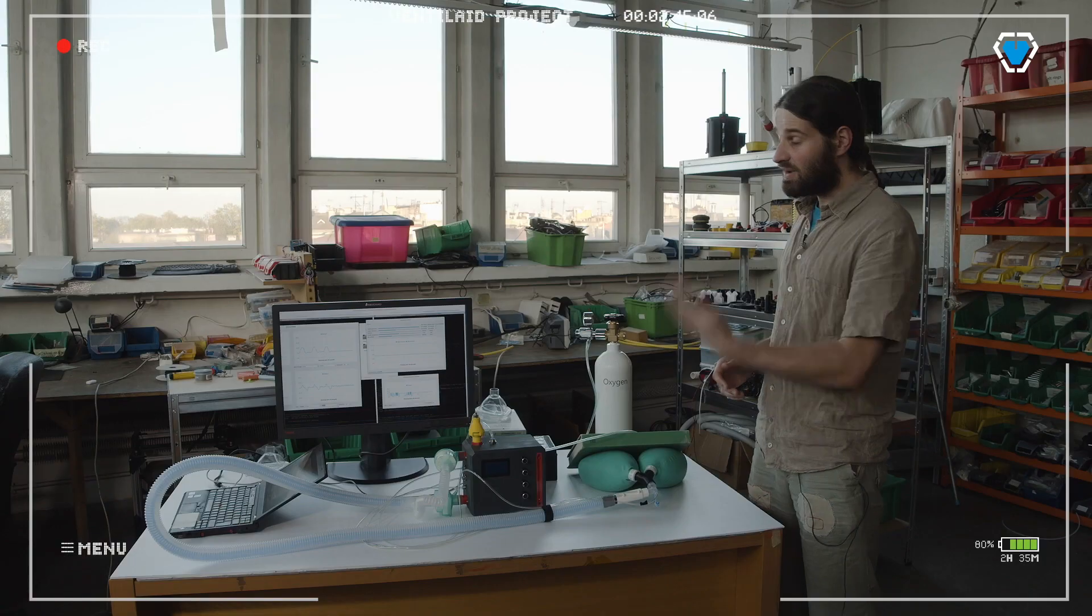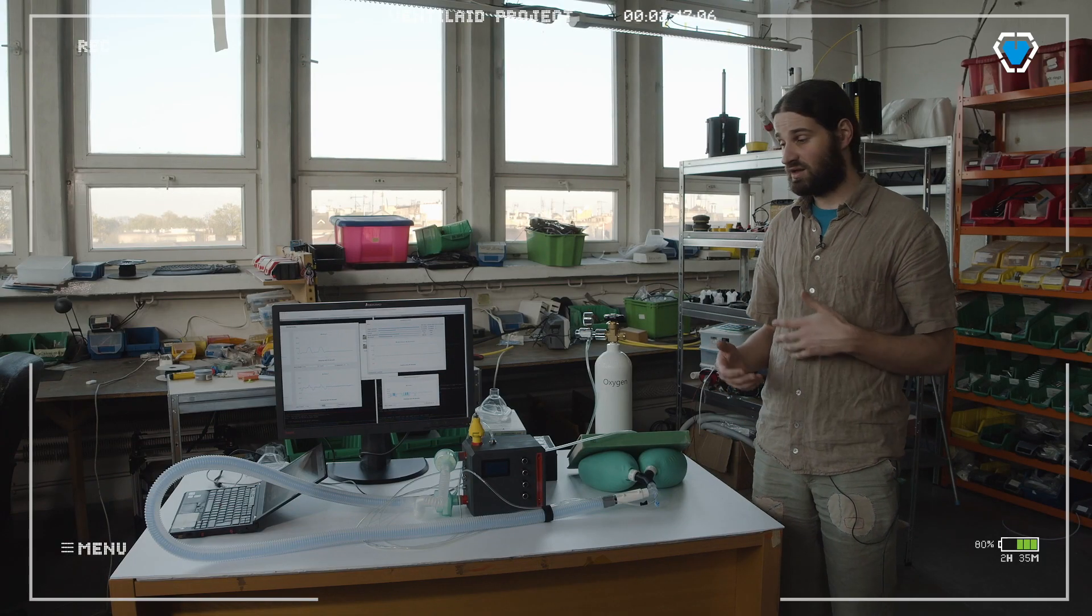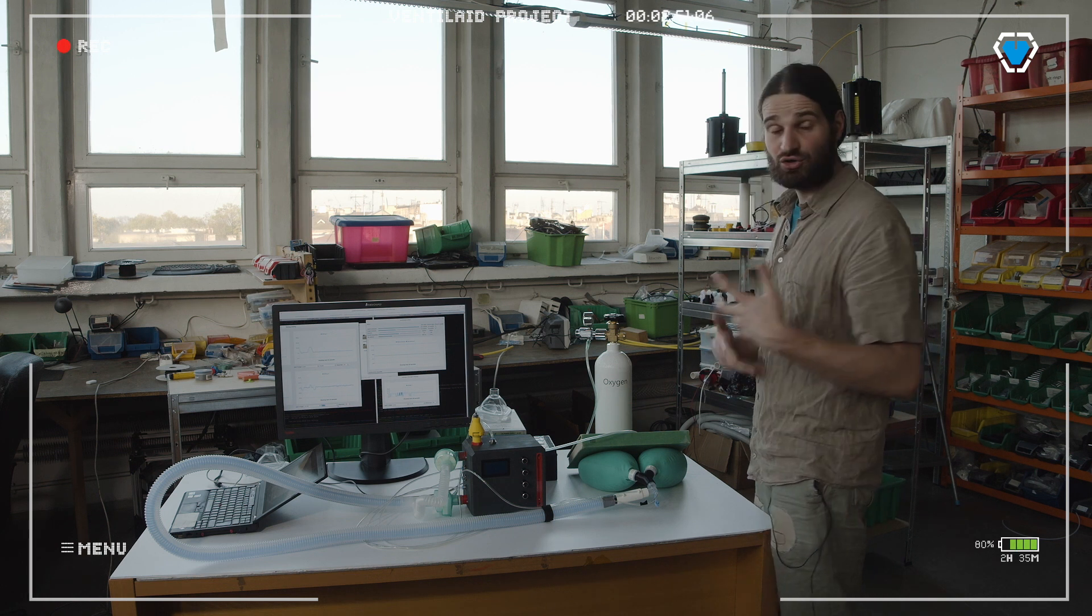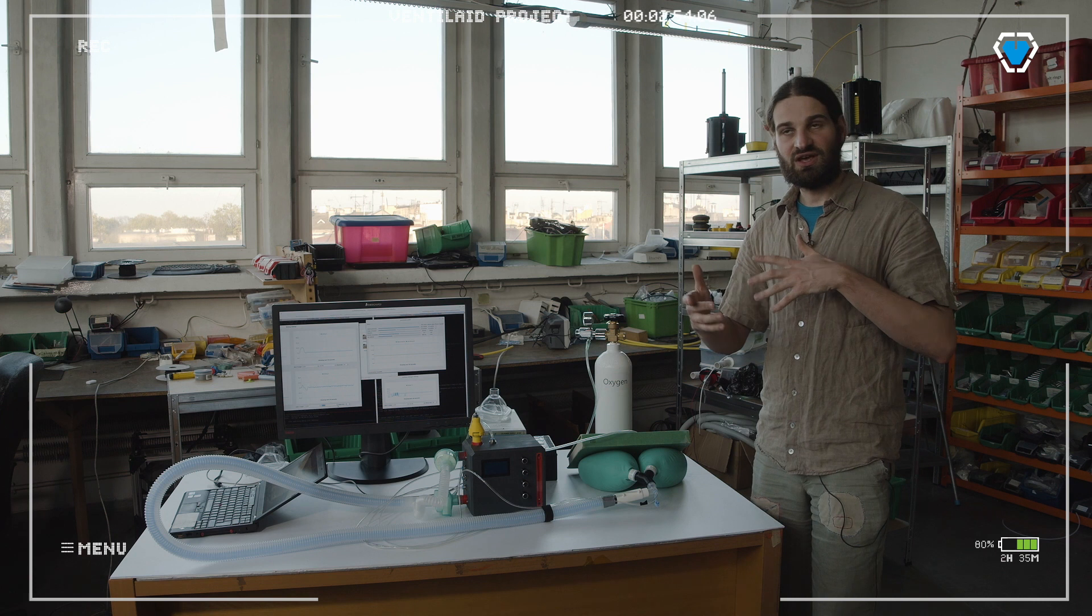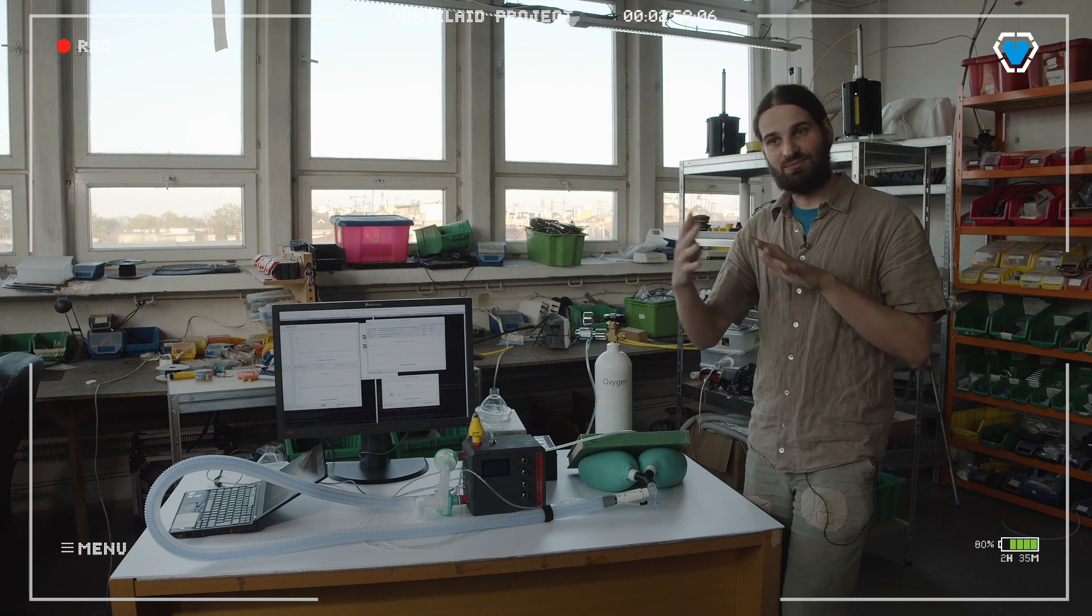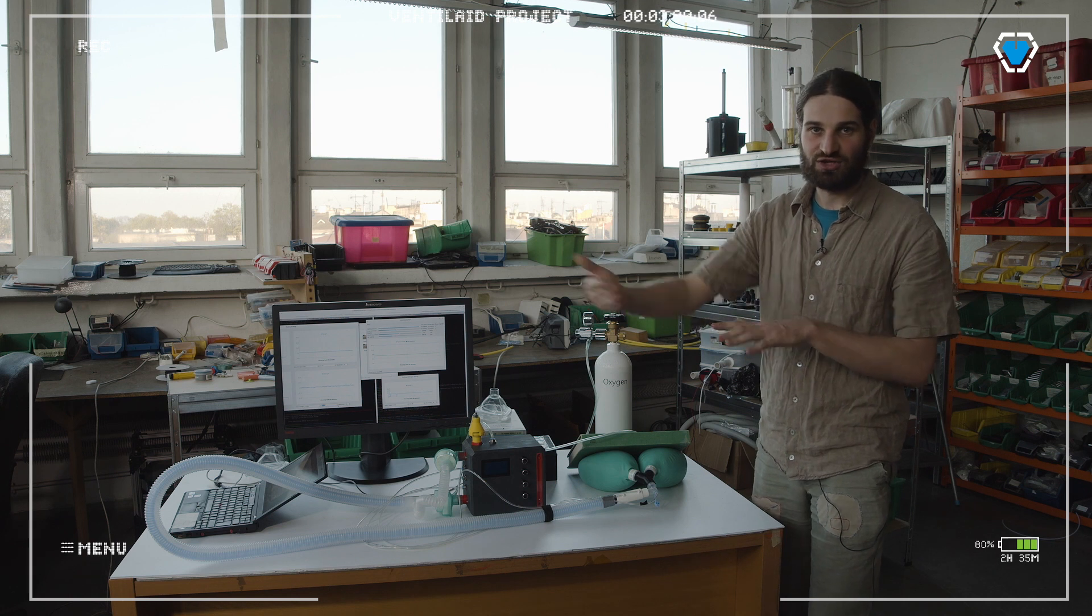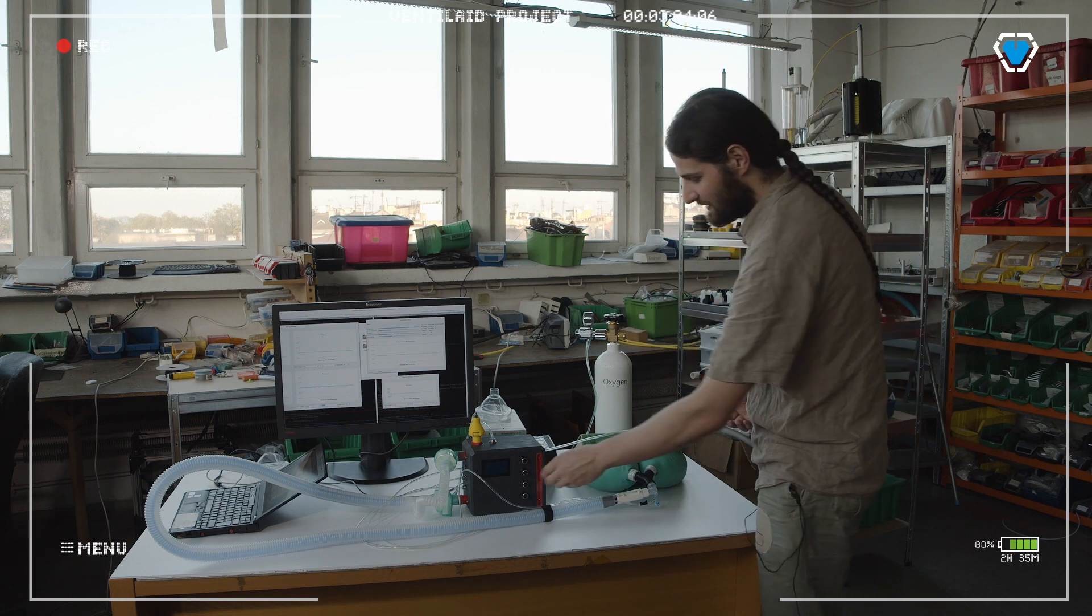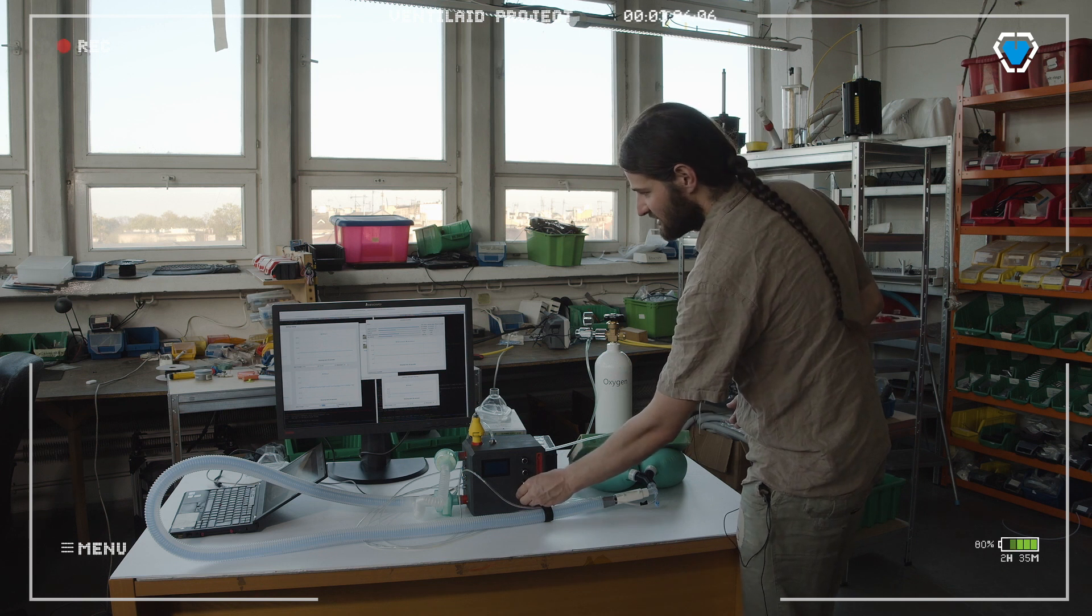Now I'm going to show you a second mode out of three basic modes of operation we're going to have, which is called BPAP. This is going to be BPAP which doesn't sense the patient because we don't have a patient here. This is BPAP that just executes the orders from the time machine, from the clock. Let me just put the dial in the right position.